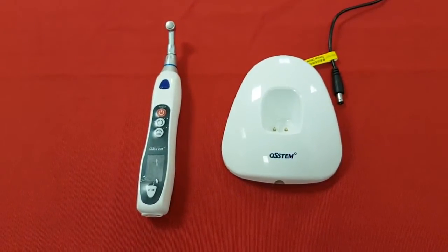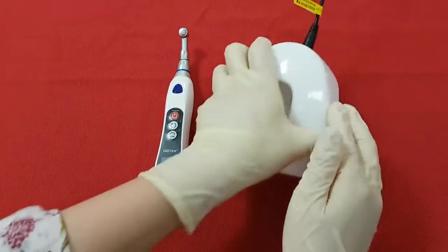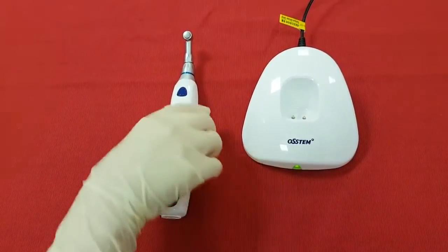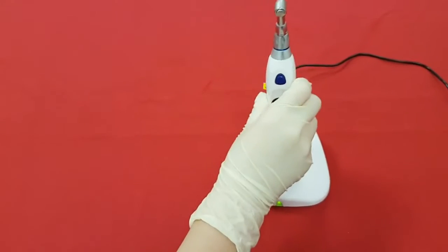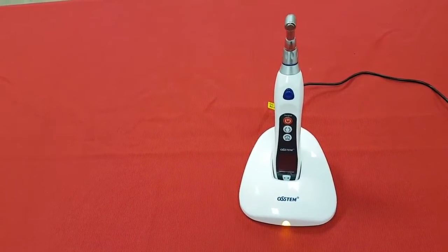These are the components of eDriver. The power cable and cradle are connected to charge the battery. Normally you can see a green light, which changes to red while charging. After recharging, you can use it for approximately one hour.